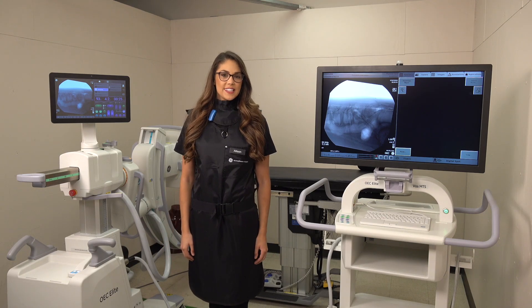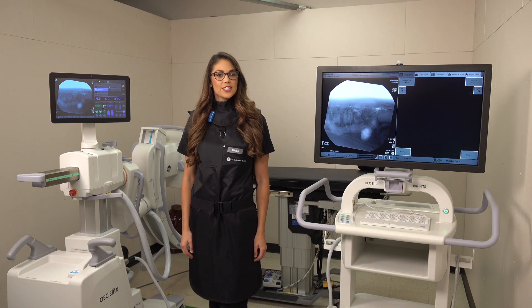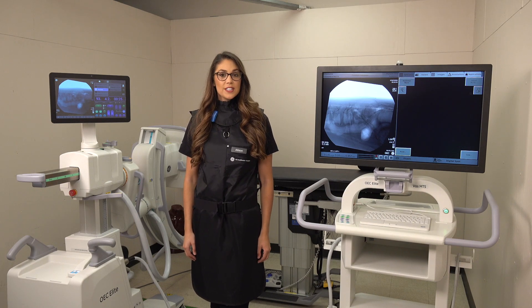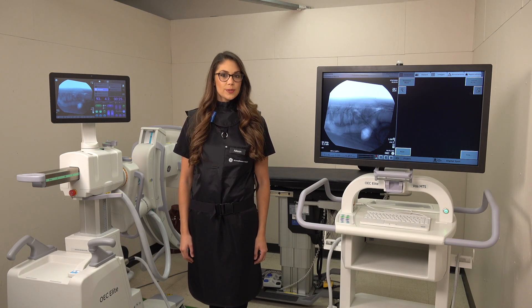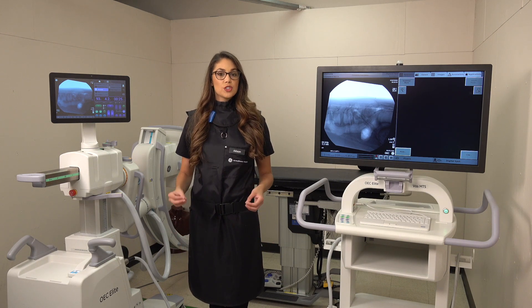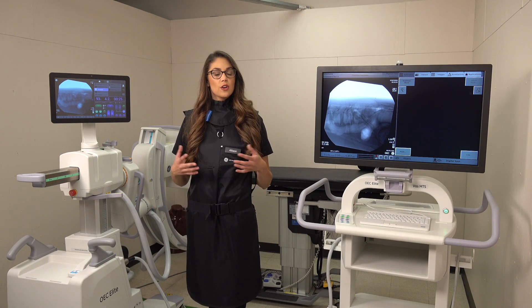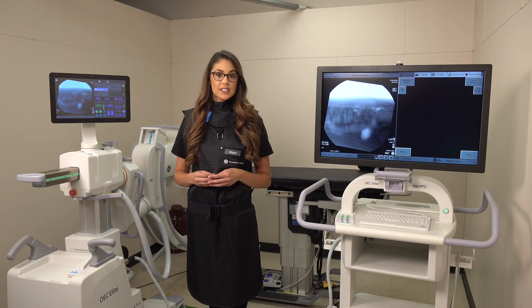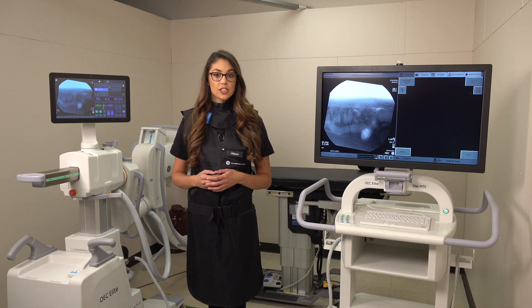Hello everyone, my name is Allison Cook and I am a clinical imaging specialist with GE Healthcare. Today we're going to be talking about collimation — what it is and how to use it. Collimation is a beam restriction tool so that your image quality is better over your area of interest, as well as it reduces your scattered radiation.